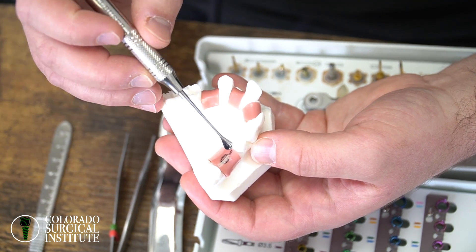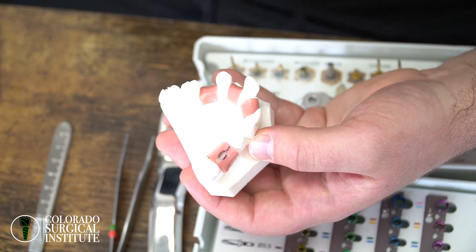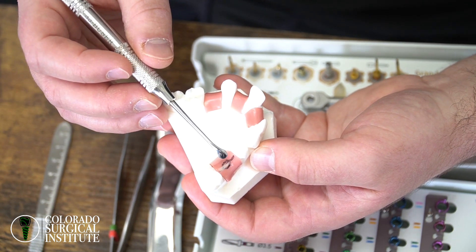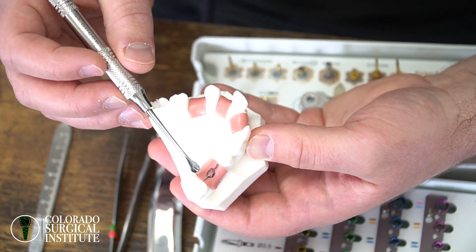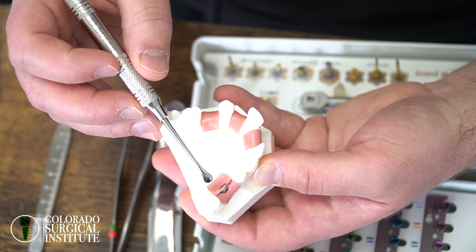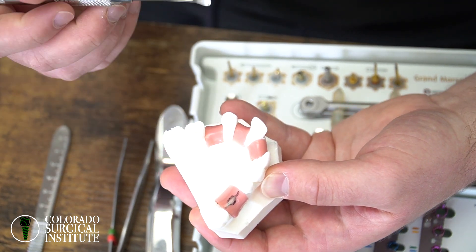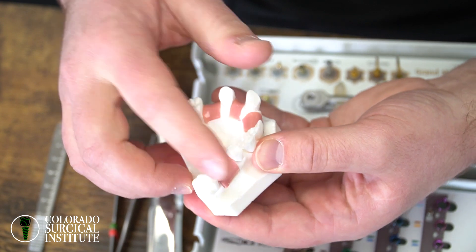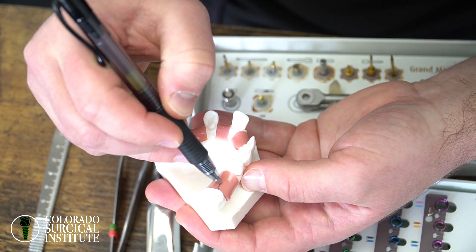What happened is their incision line was not lingualized and their suturing was not watertight. That's when we want to think about suturing techniques, and also using PRF — PRF will add an extra layer of protection over the top of the implant. We don't typically place membranes because they're very expensive — 80 to 120 dollars per membrane. The easy solution is just fixing where you put your incision, or simply adding PRF, which costs about seven to twelve dollars per use.